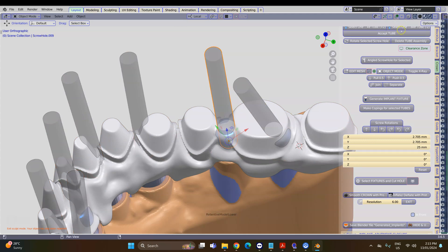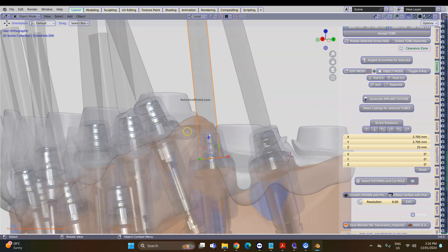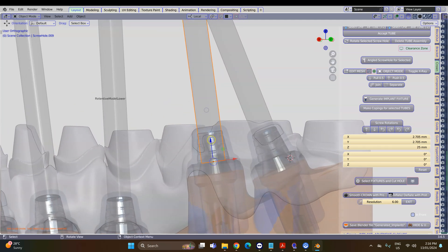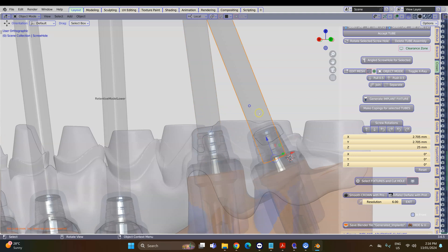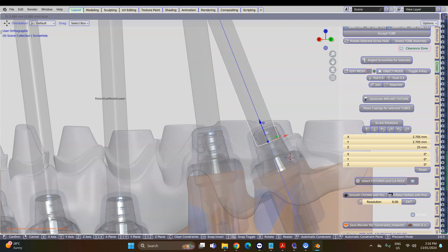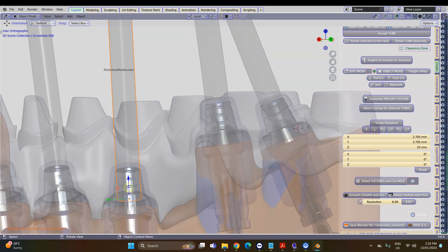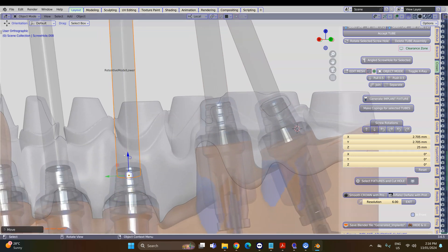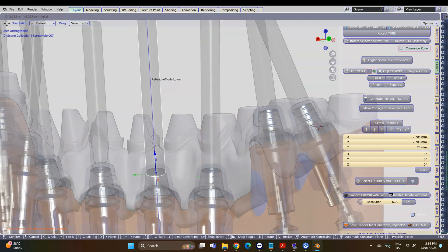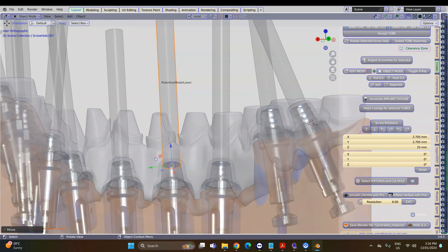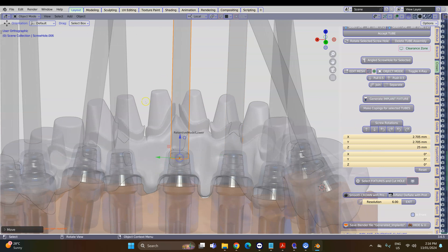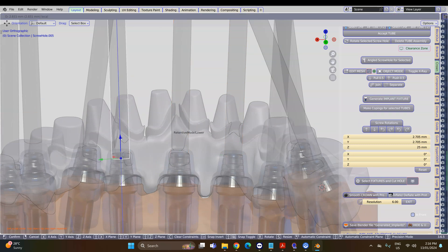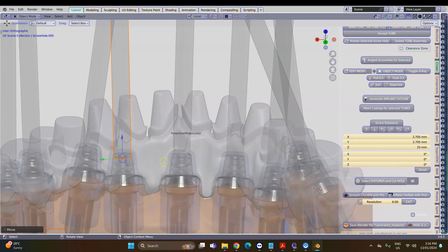Finally we want to make the holes going through this structure. Select your hole cutters and move them to the desired position. Also make sure that the diameter of these hole cutters are correct before you're cutting these holes. Position each and every one to the correct location.